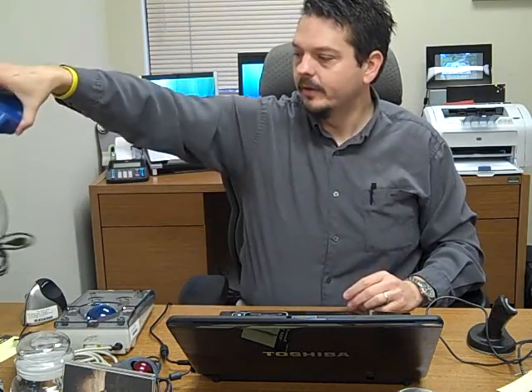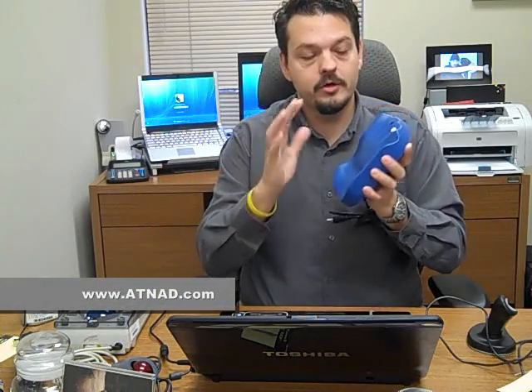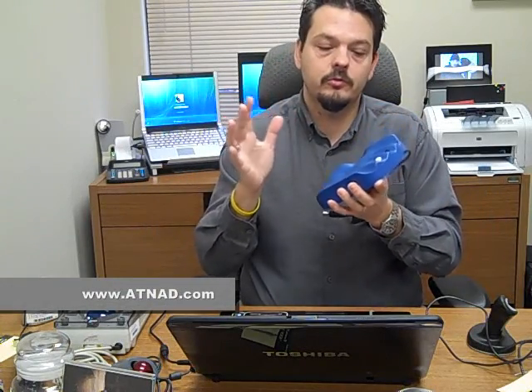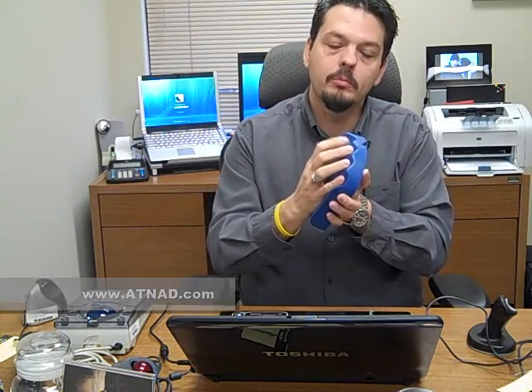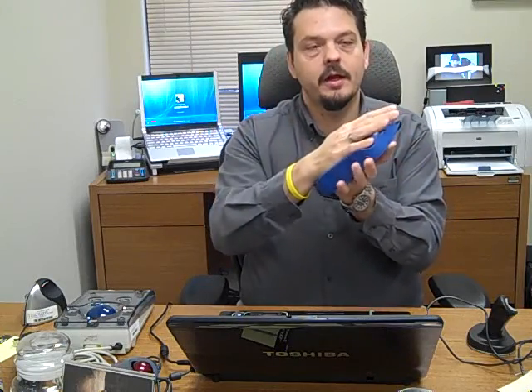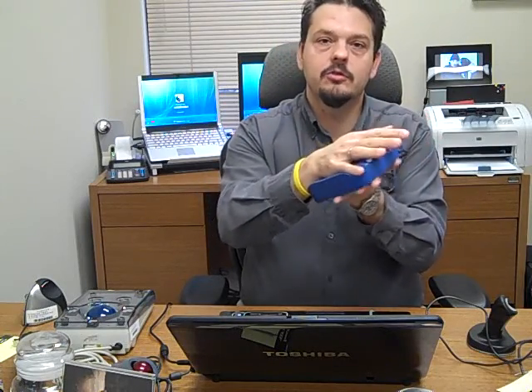We've got all different kinds of them. This is designed for somebody who might have arthritis or maybe a spinal cord injury that makes it difficult for them to pinch their hands or move their fingers around. So this one, you lay your hand on here and you slide this pointing device around.